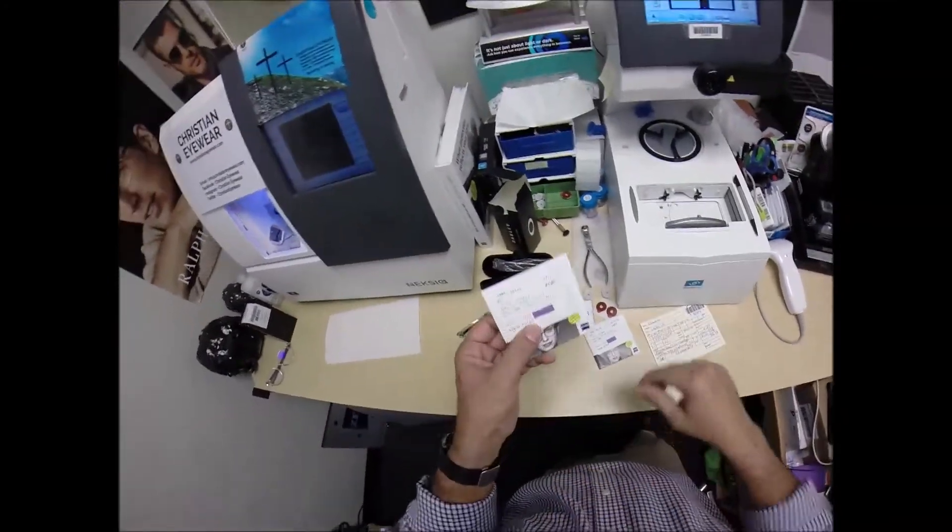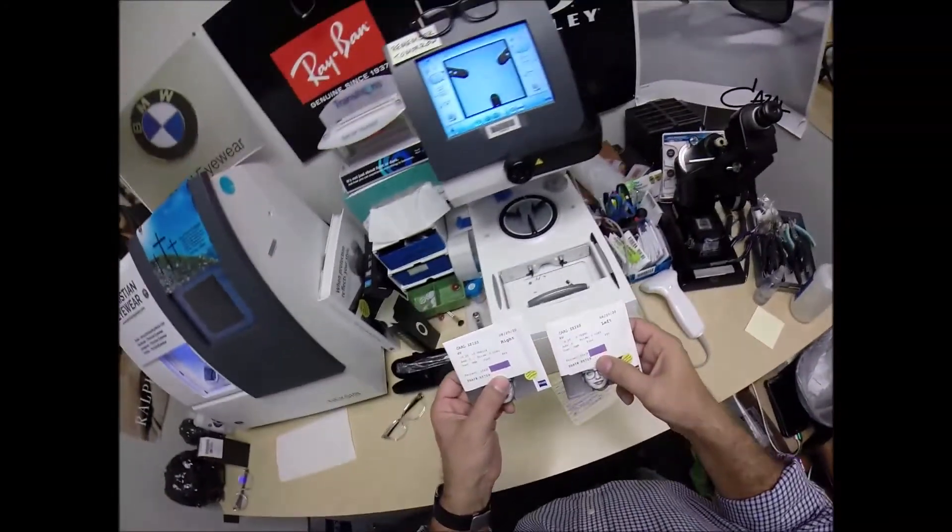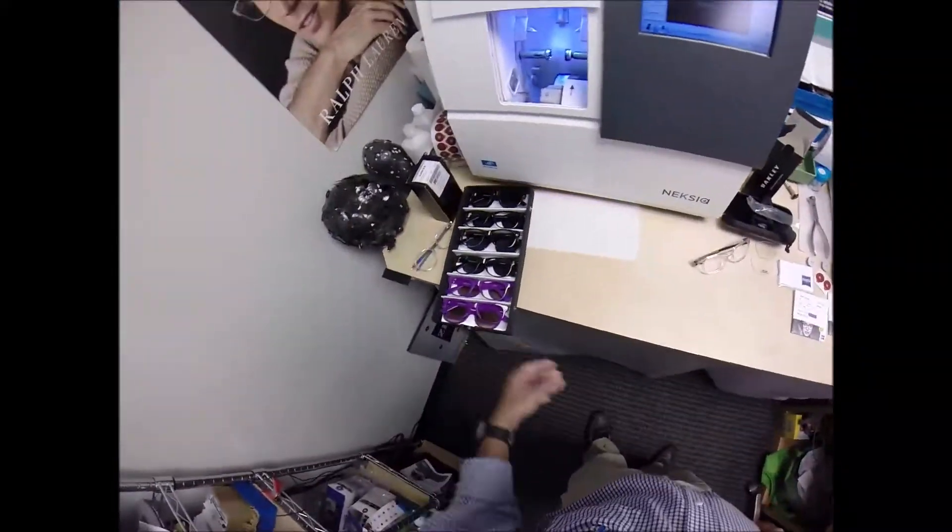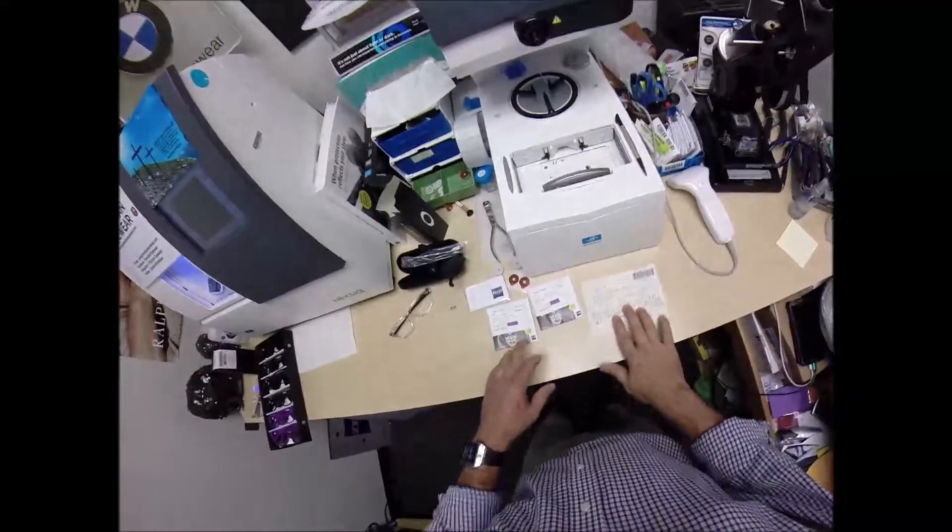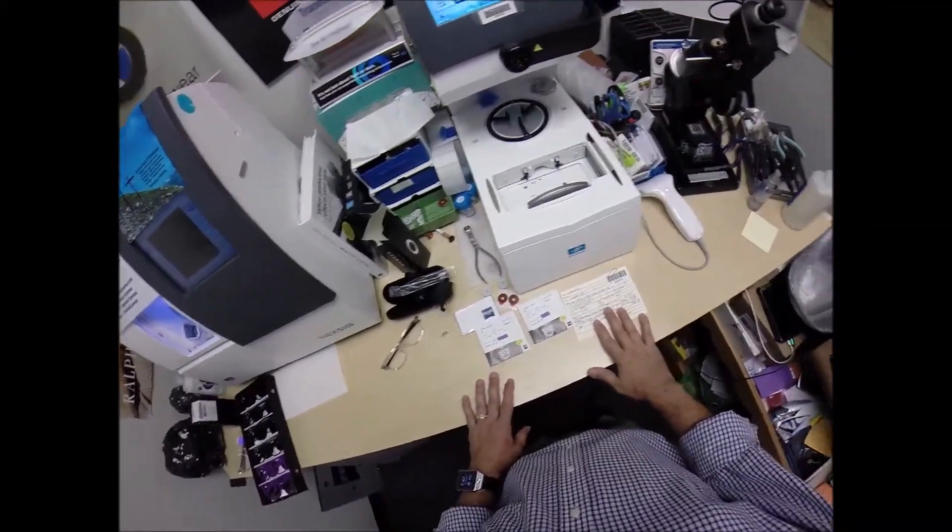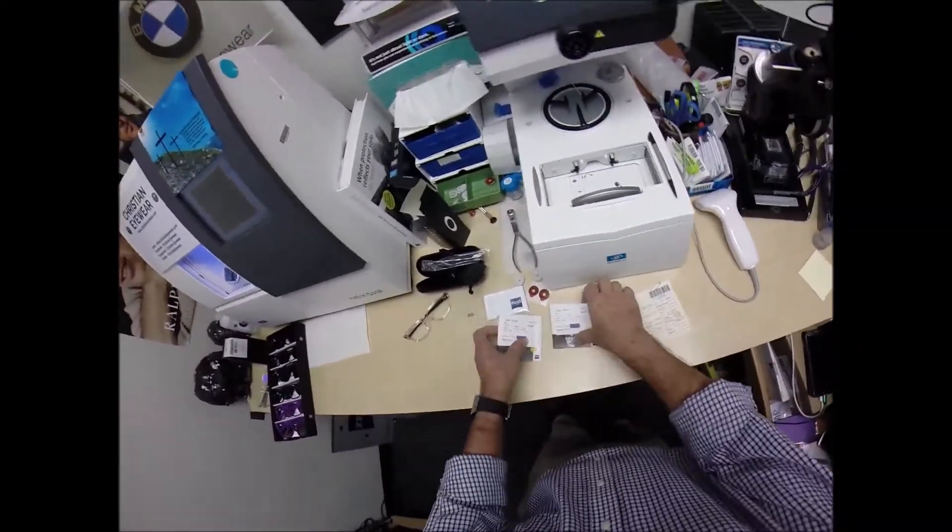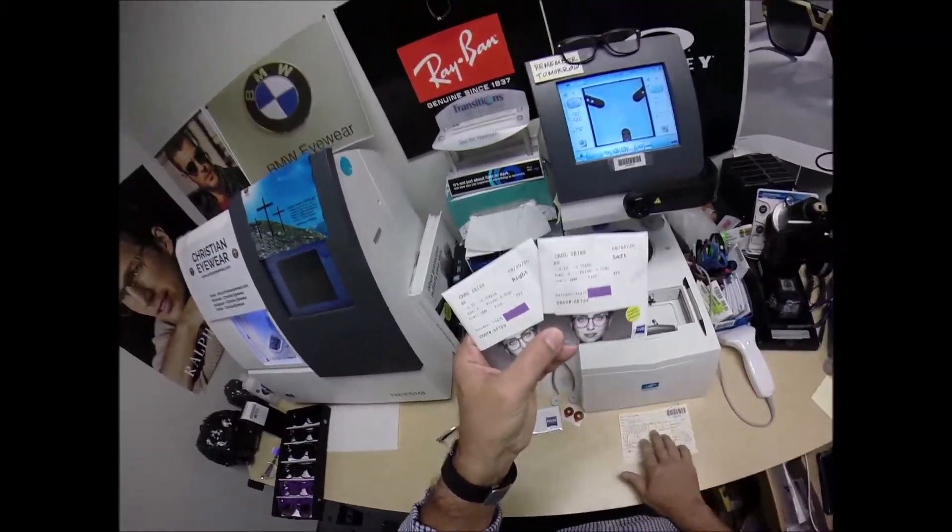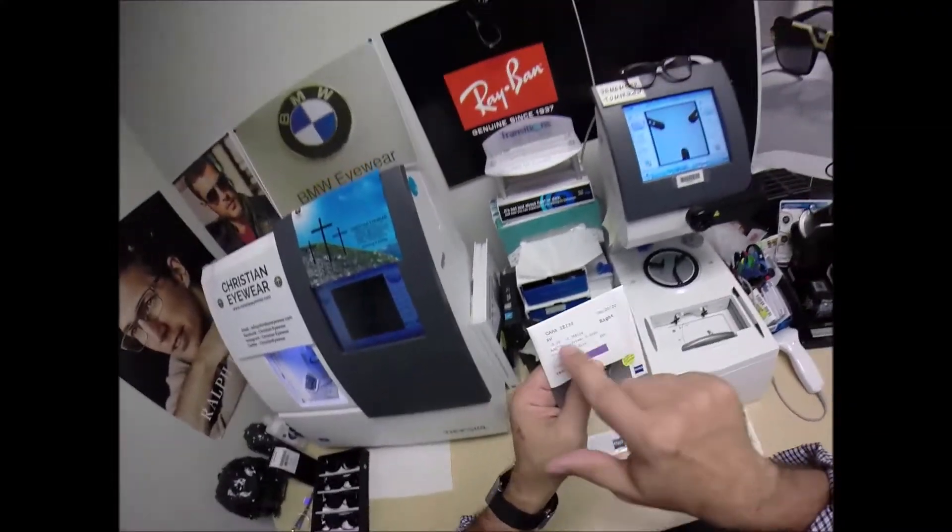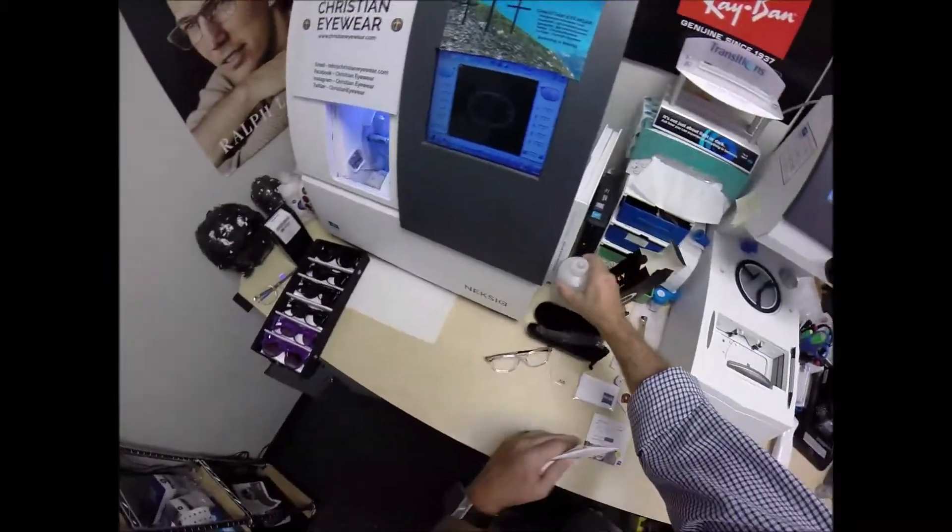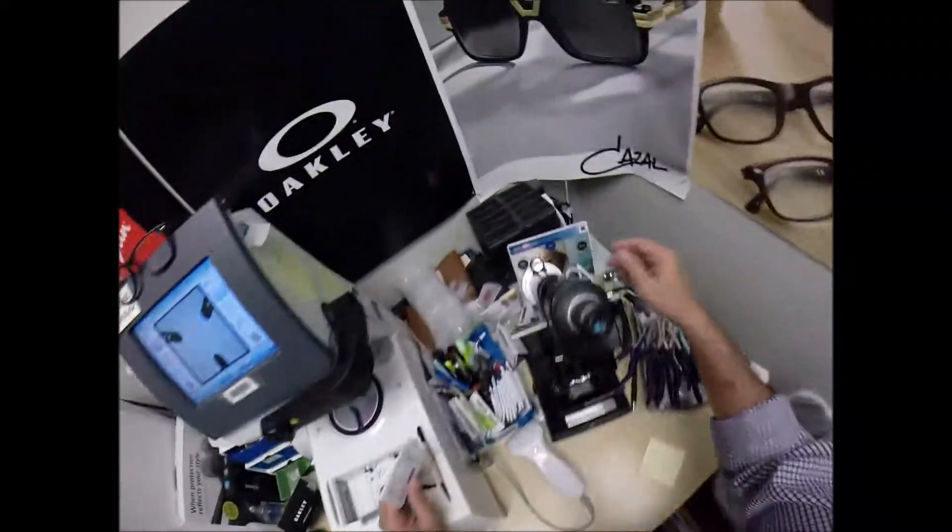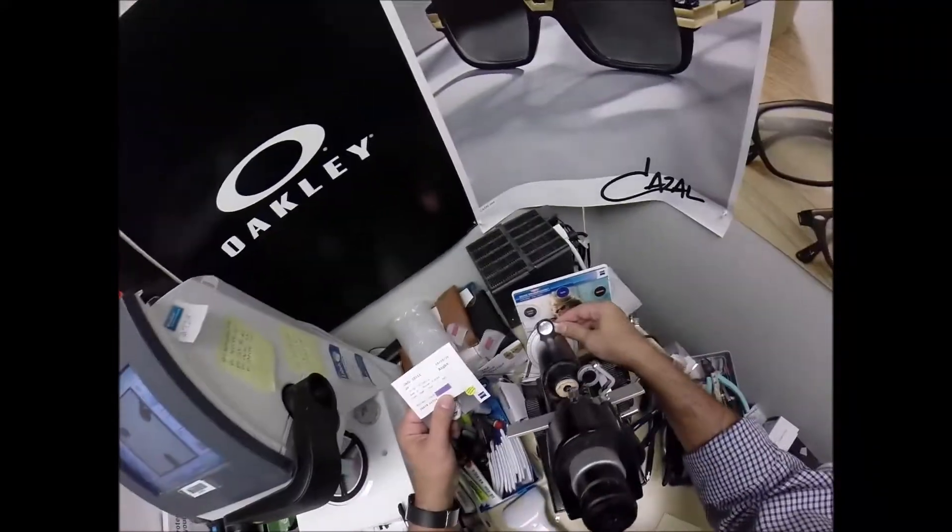Now I need to get your lenses prepped. This is your right lens. I love how Zeiss documents everything, including your name on the package. So I cover that up to protect your identity. The right lens is labeled minus a quarter, minus 75, at 104.